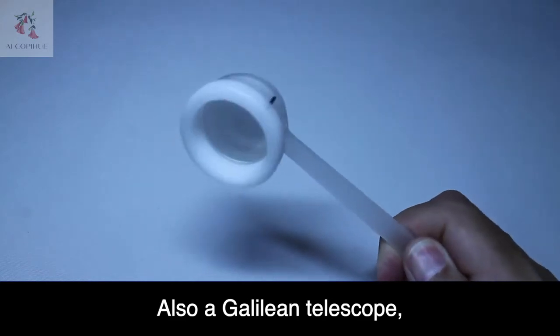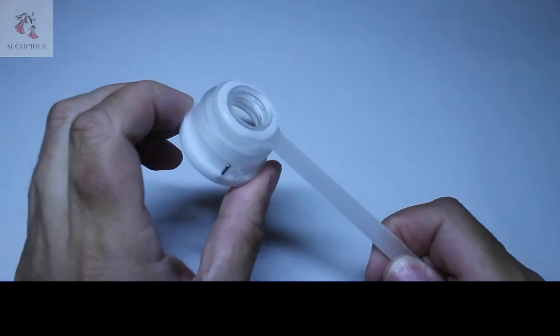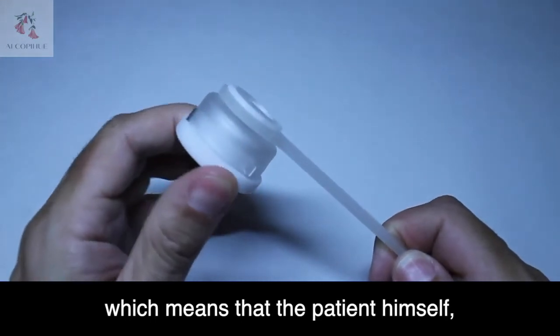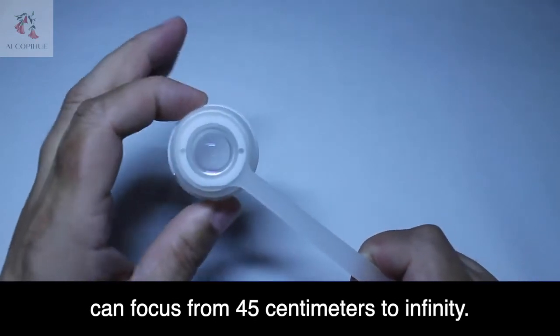Also a Galilean telescope, which has the ability to move 4 millimeters, which means that the patient himself turning a thread on the telescope can focus from 45 centimeters to infinity.